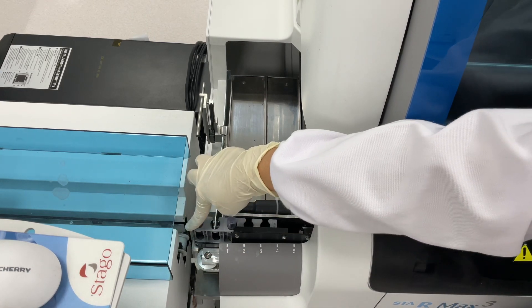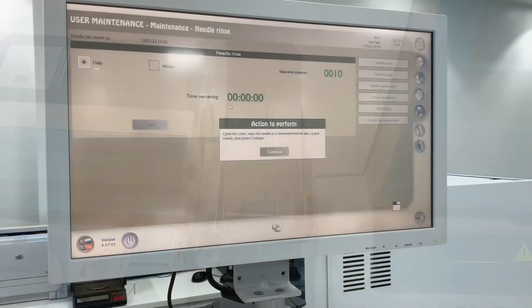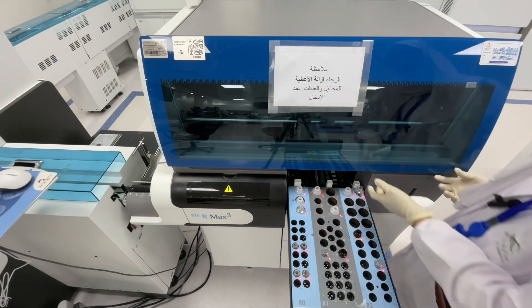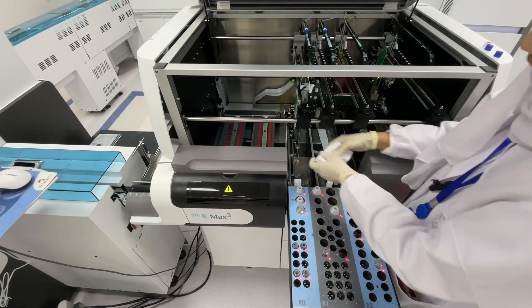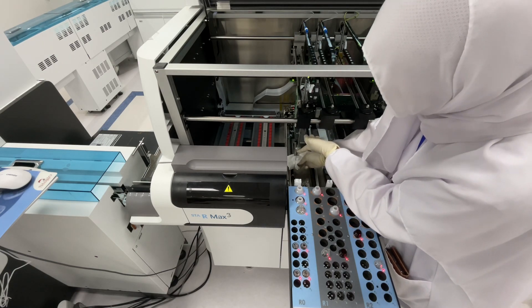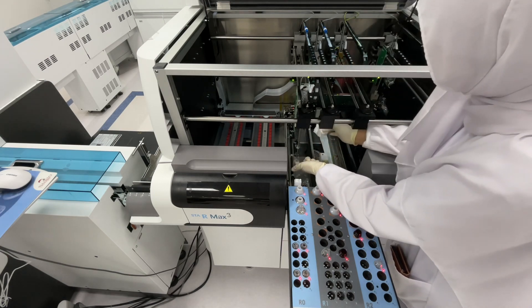Then slowly push it up inside. After ten minutes, there is an action to perform - the reagent drawer will open. Then open the hood, lift this up, and wipe the probe down, then release this cover.